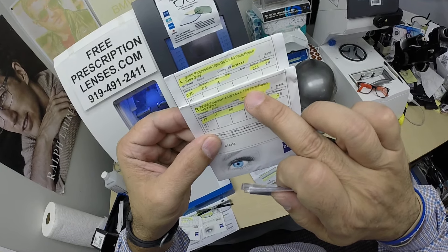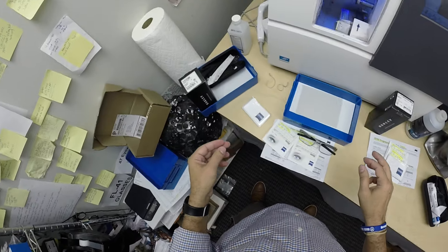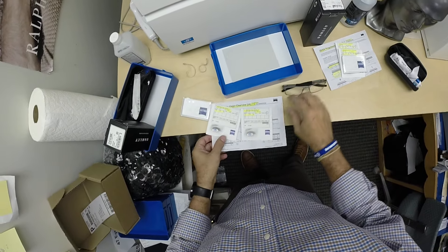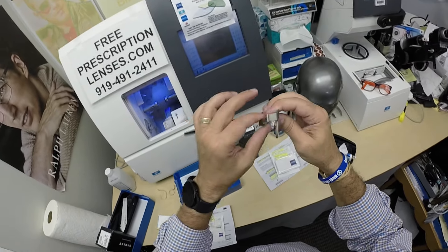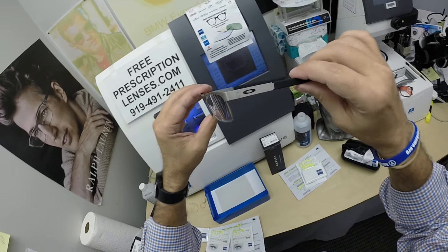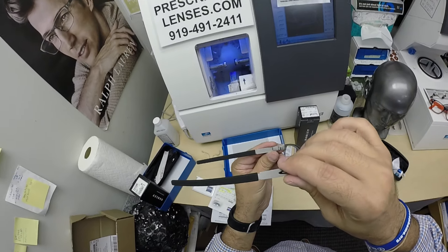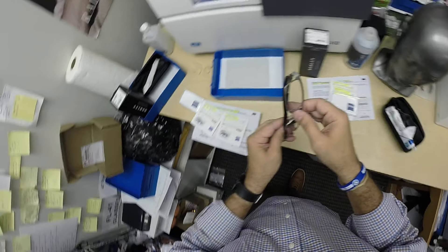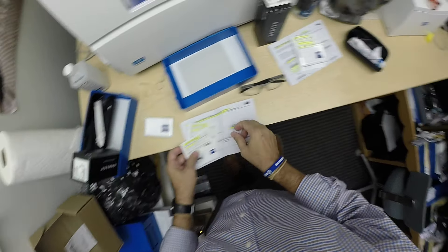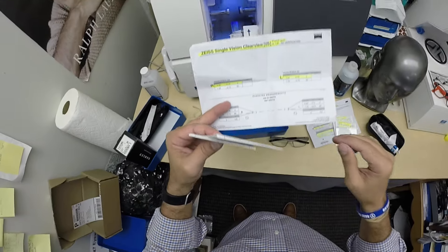He also got polycarbonate — the 1.59 refractive index of polycarbonate. His son has a stronger prescription. His son, exact same frame, the titanium metal plate — nice frame in the brushed satin chrome. But he has a stronger prescription. Let me just glance at it. Oh, and higher astigmatism. He must have his mother's eyes.